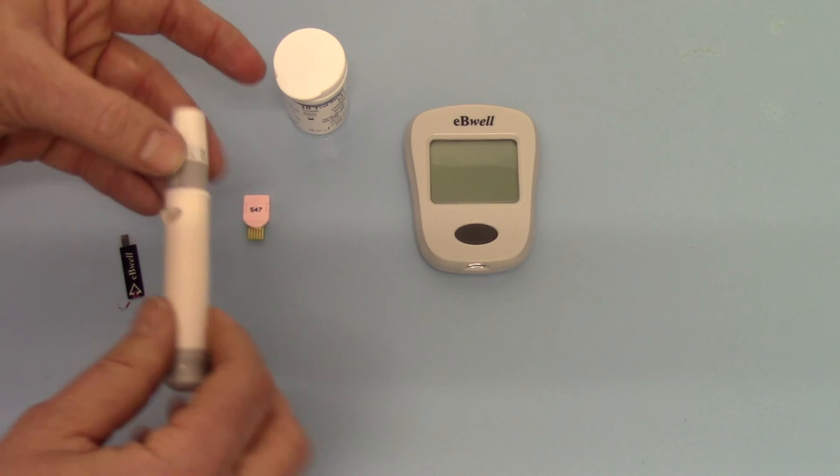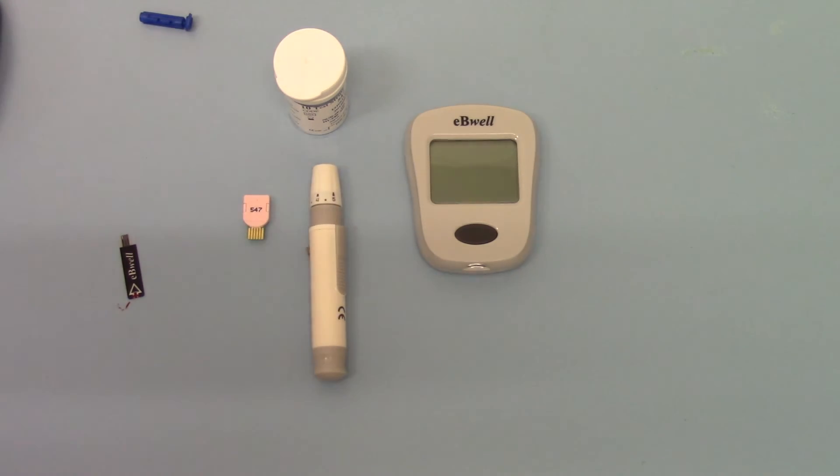We would recommend that you use a fresh lancet each time you do a test. That reduces the chance of infection. It also means the lance that you're using is lovely and sharp so you're going to get less trauma, less soreness.